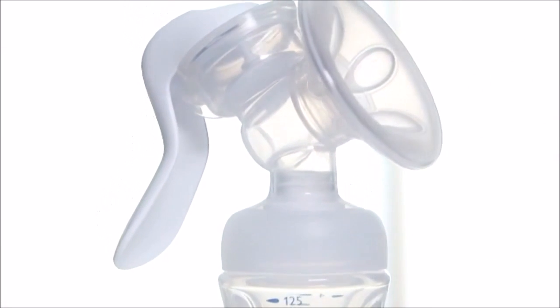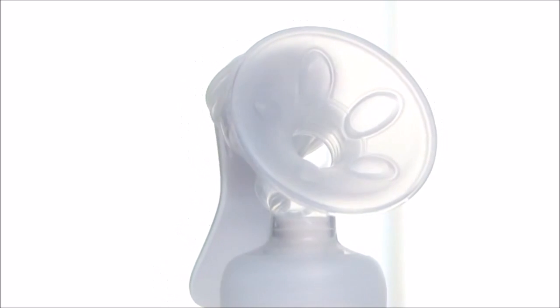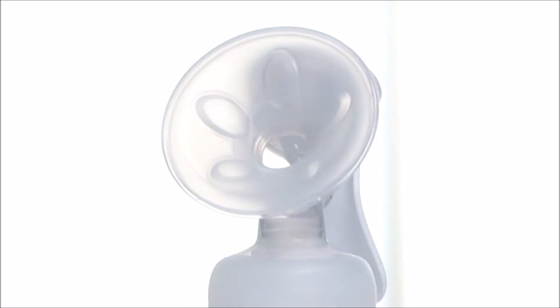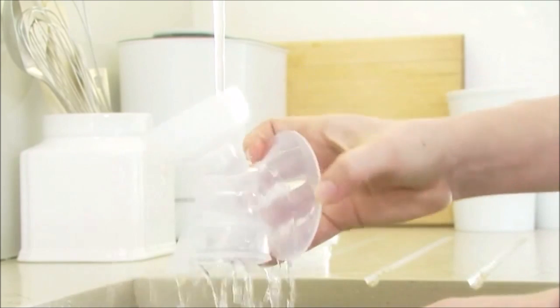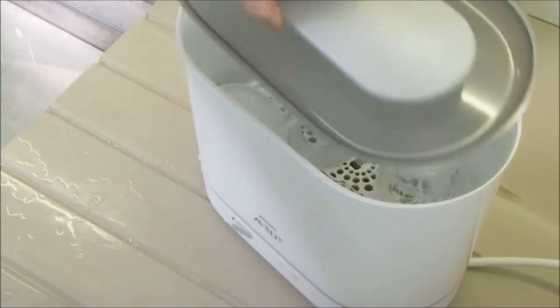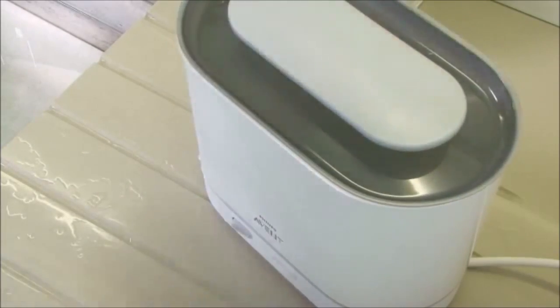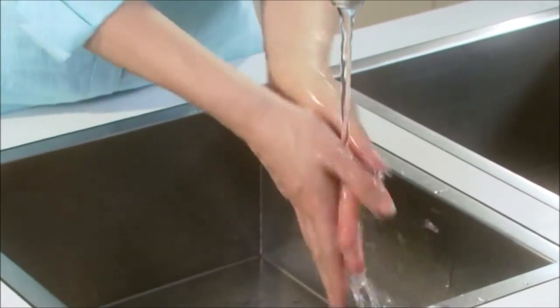Assembling the Philips Avent Comfort Manual Breast Pump is easy and can be done in a few simple steps. Before you start, make sure you wash, rinse and sterilise the non-electrical parts and wash your hands thoroughly before you handle the cleaned parts.